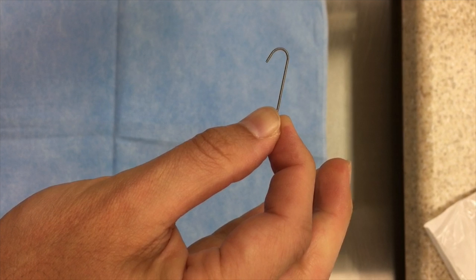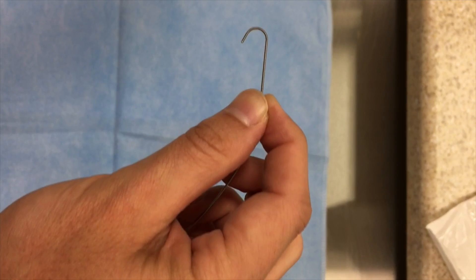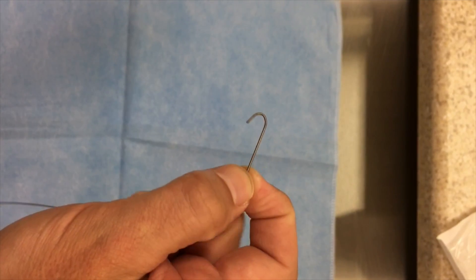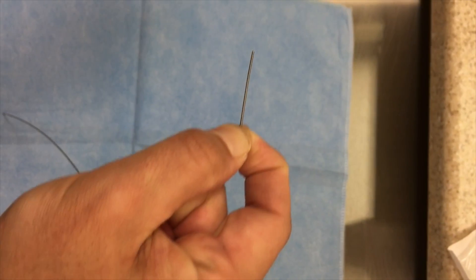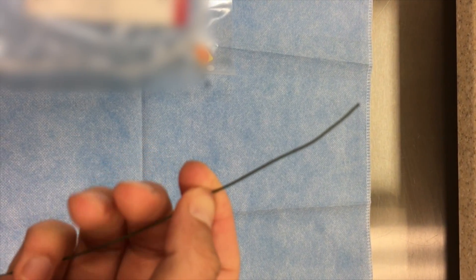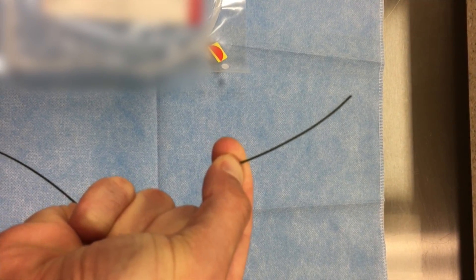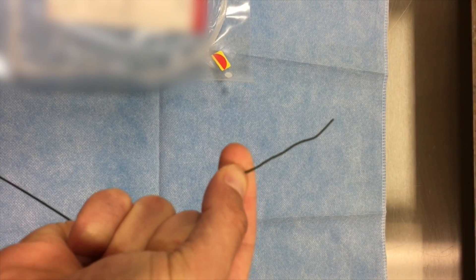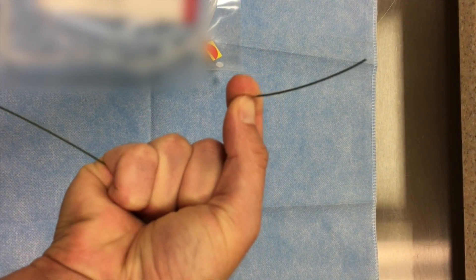I'm going to show a small trick with the tip of the wire. If you have a wire with a J-tip, it would be difficult to insert it directly into a catheter. The trick is: grab the end just before the curved part, hold it here, and with your other three fingers use your nails to push forward — you can straighten out the wire and now you can place it through a catheter. For an angled wire, if you're having trouble getting it into the catheter, grab it like this, fingers go around, push forward, grab it tight and push forward — you'll see it straighten out and you can insert it much more easily. Relax and the wire relaxes; grab it with your nails and push forward to tighten.